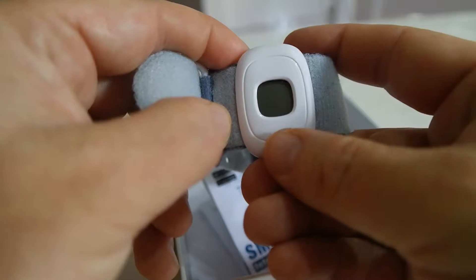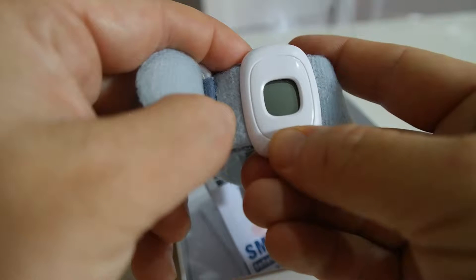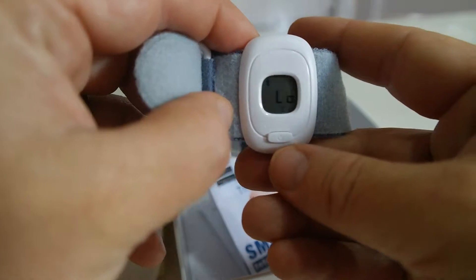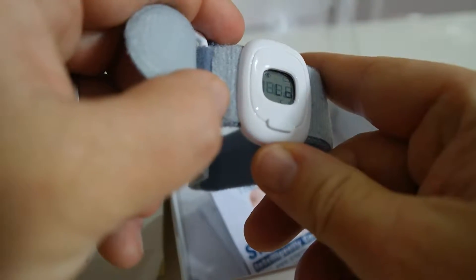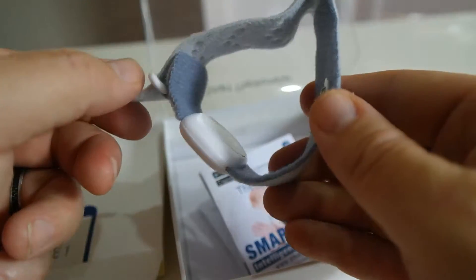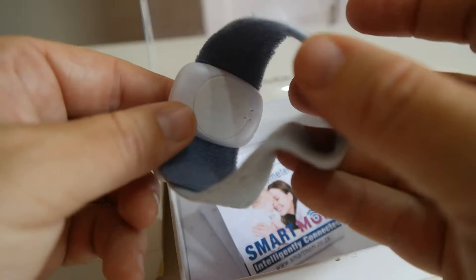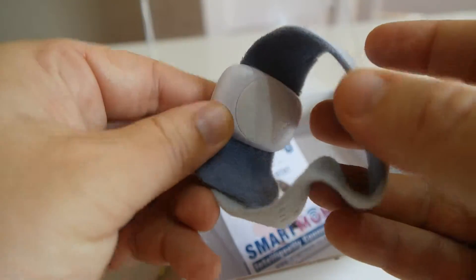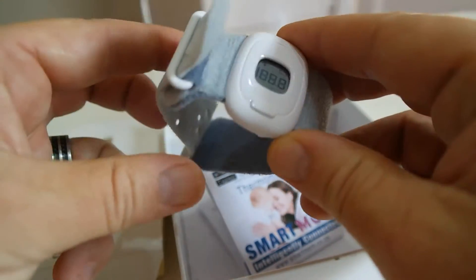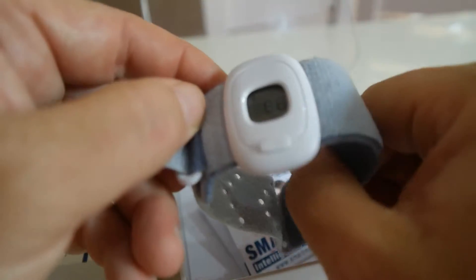There are also a lot of statistics that you can save on the app, plus warning signals you can receive while your child is sleeping or when you're busy somewhere else in the house. It comes with a battery included that lasts up to a thousand hours.